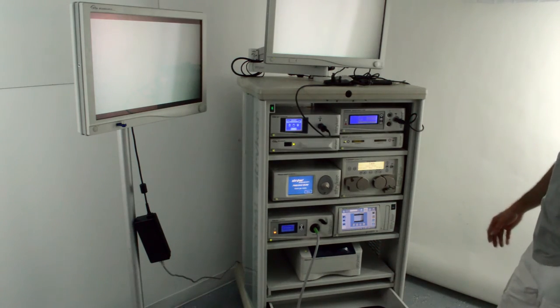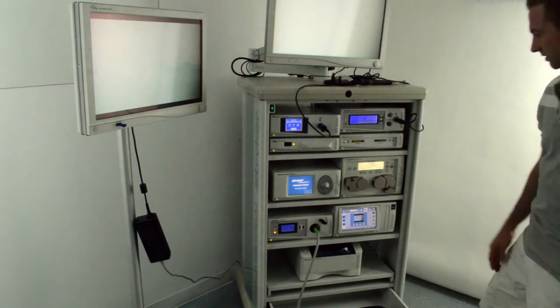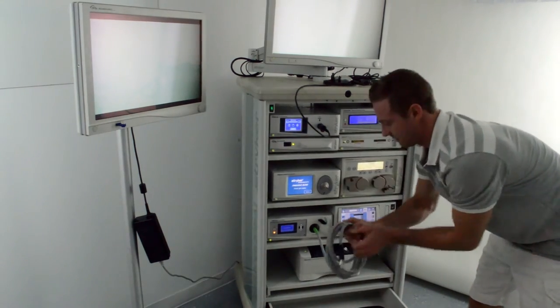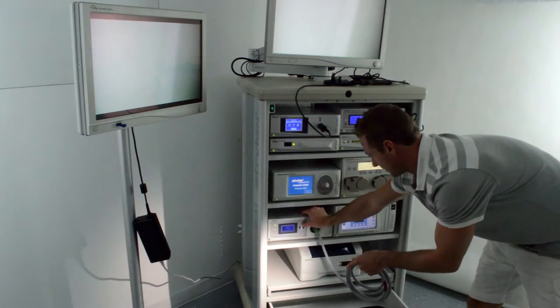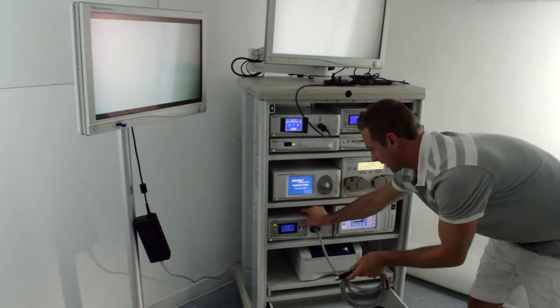It's very easy to use. The X8000 light source has a safe light cable to it. You can easily increase and decrease the light.